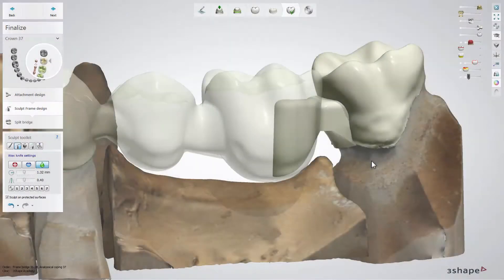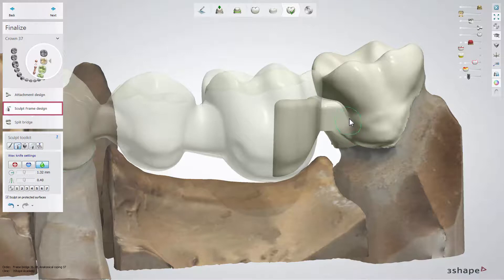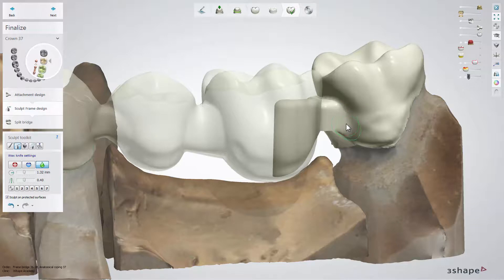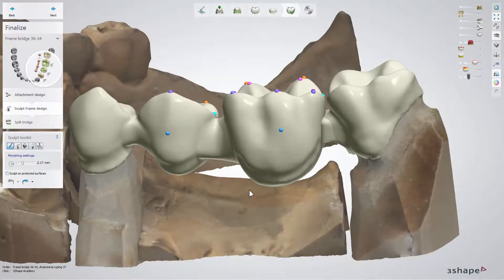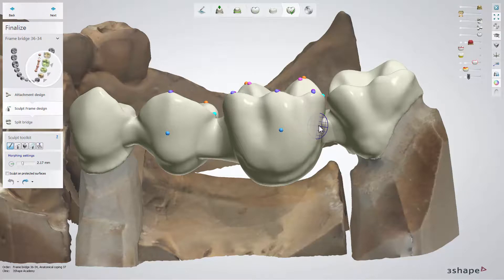At the next sculpt frame design sub-step, you are able to make final adjustments to the complete design. Make sure you create enough space for the ceramic layer, which will be added after production, and smooth the connection between the attachment and coping. Now move to the female part and adjust it so it rests nicely on the base of the attachment. This way you can avoid bridge rotation.